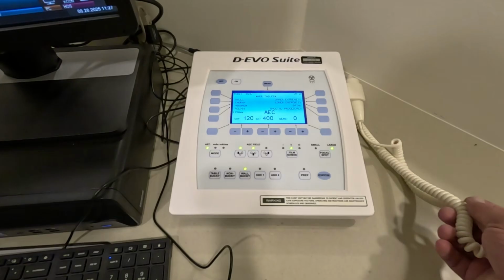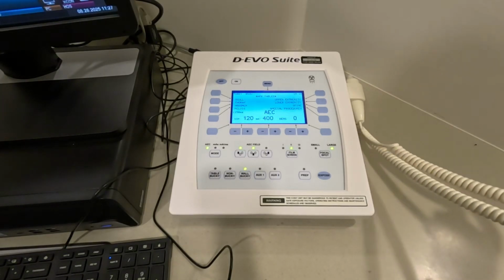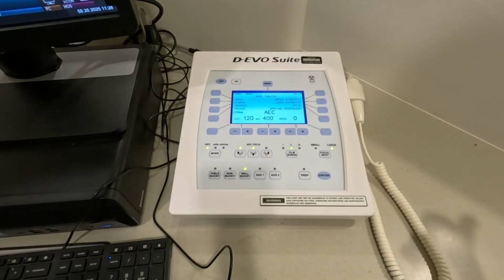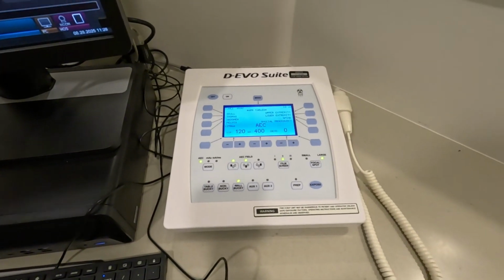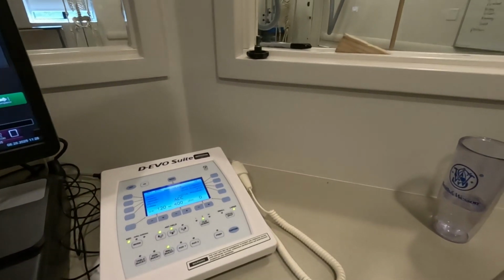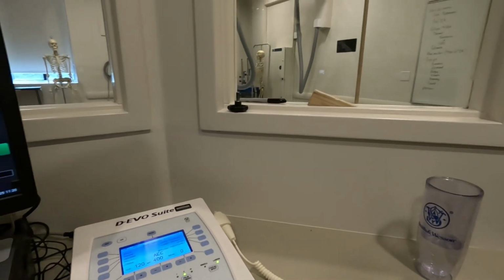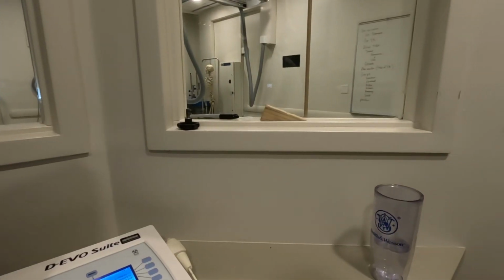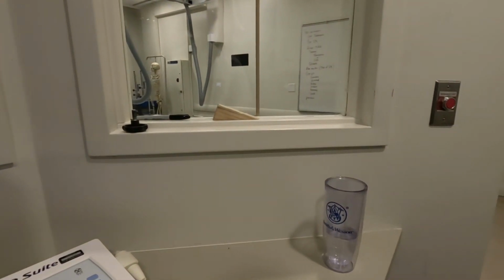In an x-ray room, that needs to be pretty short. You don't need to be standing out in the room with a button in your hand. You need to be making your exposure in the exposure booth in the console area. It's radiation protected. We've got windows that are leaded glass, and the entire booth is leaded so that x-rays won't get to you. Also, there's an emergency cutoff right there.